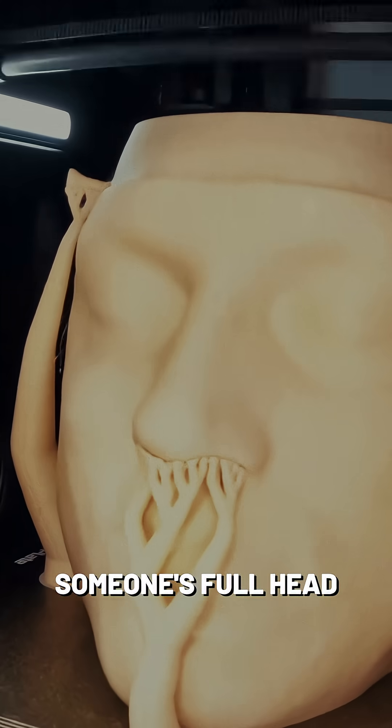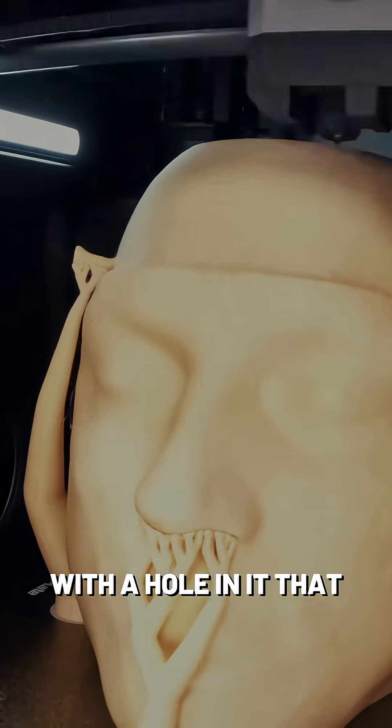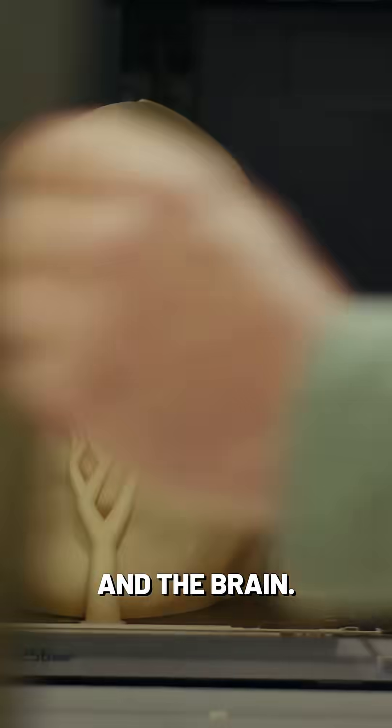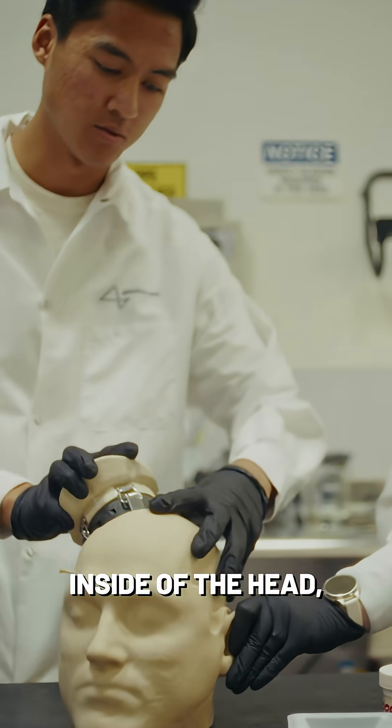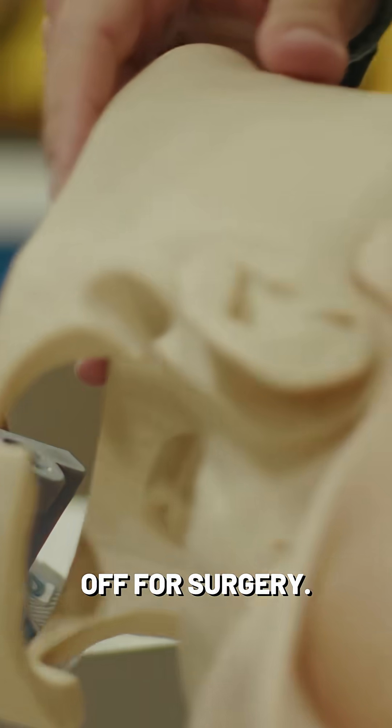So we basically have someone's full head from the neck up with a hole in it that will fit the skull cap and the brain. That whole assembly will go inside of the head and then it's ready to ship off for surgery.